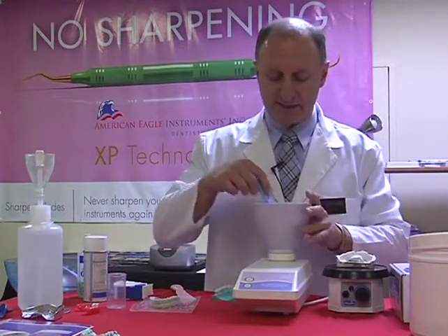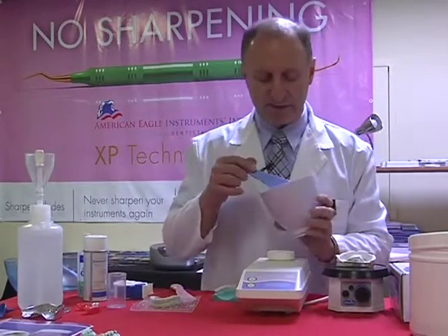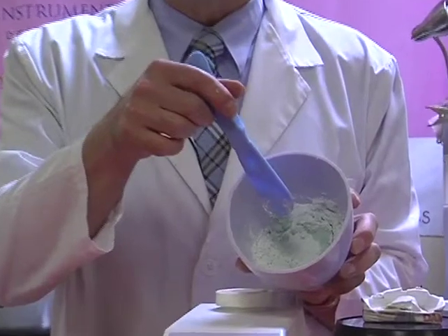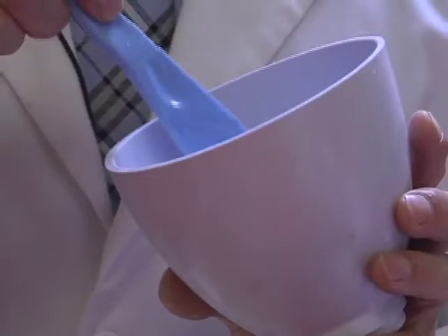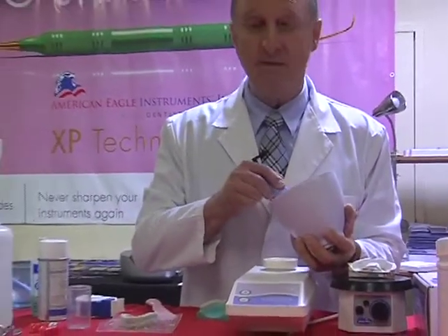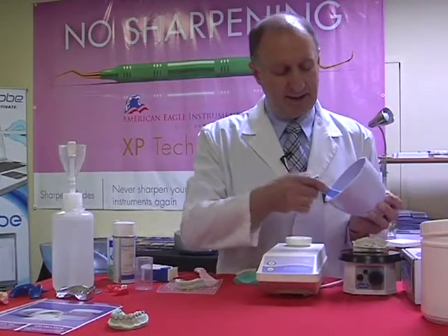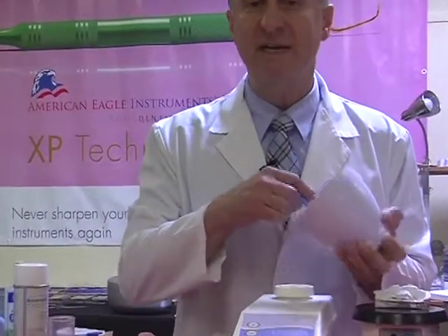Now, it's still absorbing inside, but let's see if I can turn this towards you so you can have a look inside. It almost looks like there's a small amount of cracking on the surface. I don't know if you can pick this up on the camera. So there's cracking on the surface. Now when I combine these two together, I'll end up with what we are looking for, the best ultimate mix, as if it was measured by weight and by volume. I'm just combining these two together, and this is the type of mix that we should be getting. It looks somewhat dry, but we do want to have a dry mix.